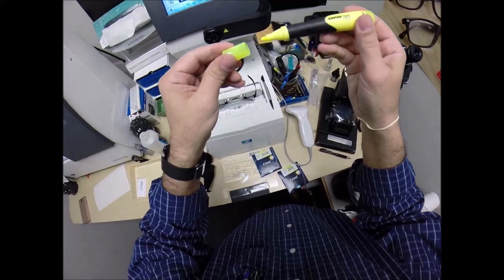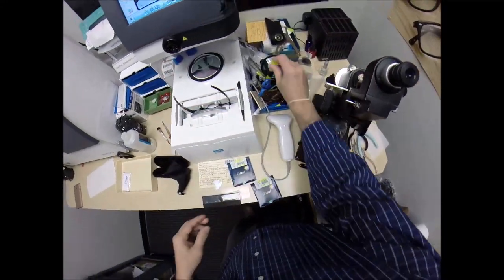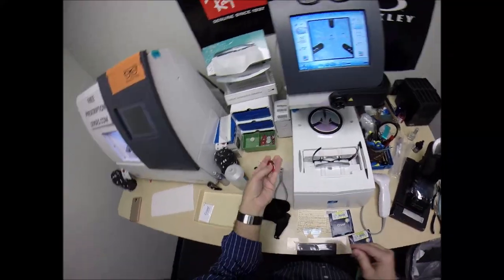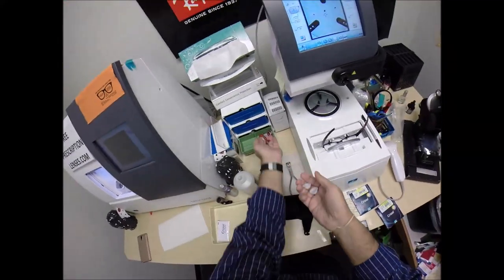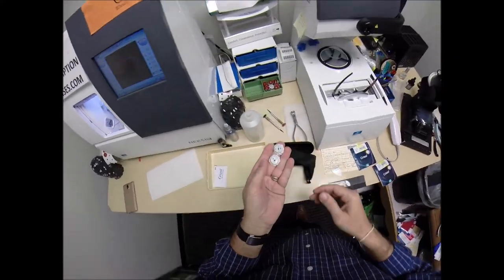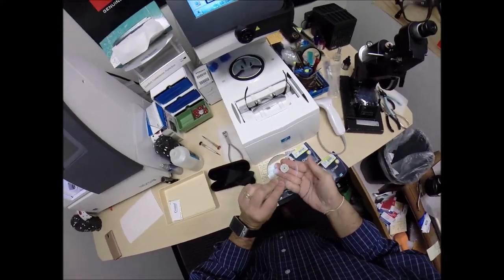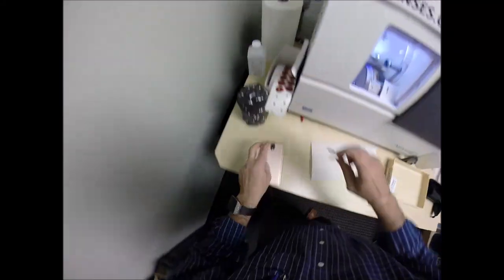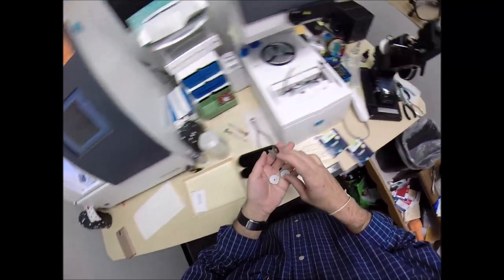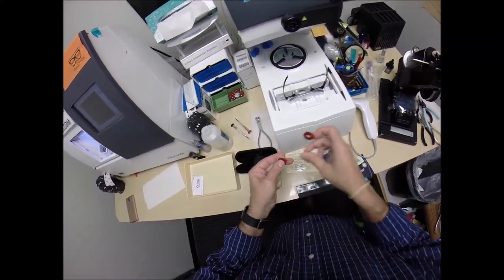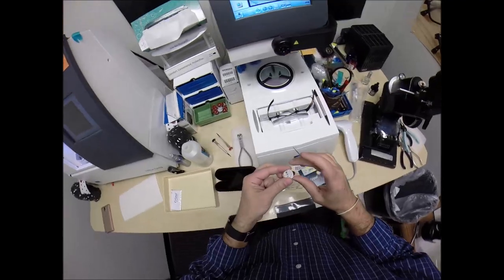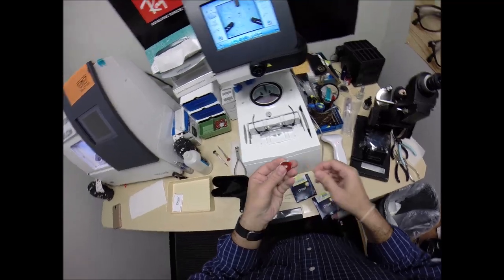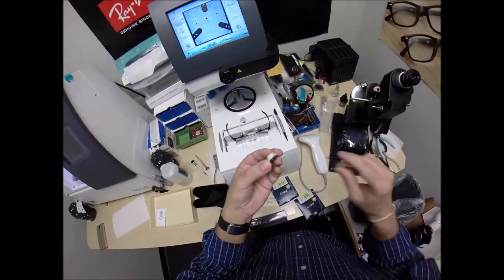Now, if you guys missed any of that, let me recap. You know you weren't getting away with all the bad joke in here. Okay, so I've already got them on over here. Let me throw those back in. And this is a block, or as I like to call it, Jenny from the block. I need to attach this to your lens while it is cutting. So I need two double-sided adhesive stickers, of which I've got that there. I've got my phone right here because Larry, also in Missouri, said he would call me about a Ray-Ban. Put that on the platform there. Put that one on there. Peel the paper way to make the black side sticky.